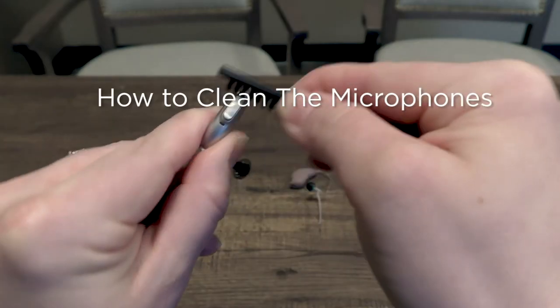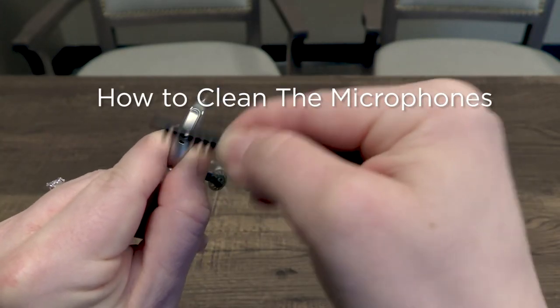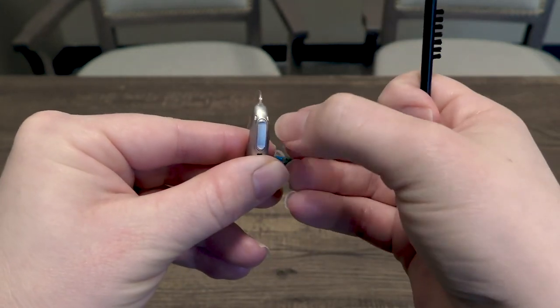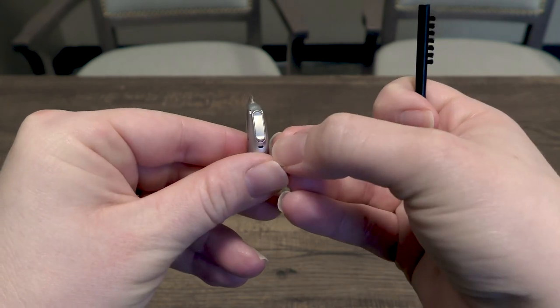Now I'm going to show you how to clean your microphones. Every hearing aid is a little bit different. This is the Phonak Marvel. You can see there's two microphones right here and then one down below.